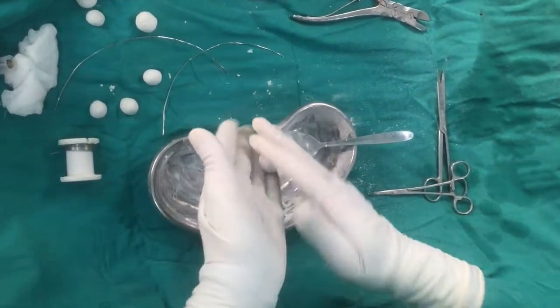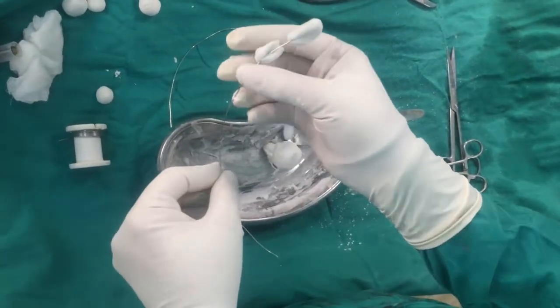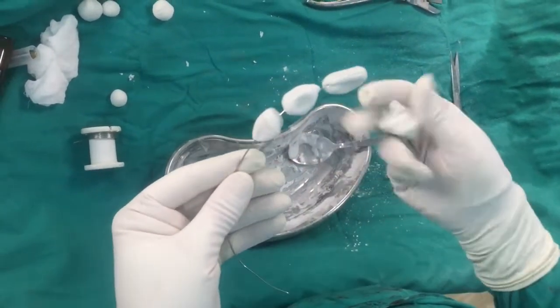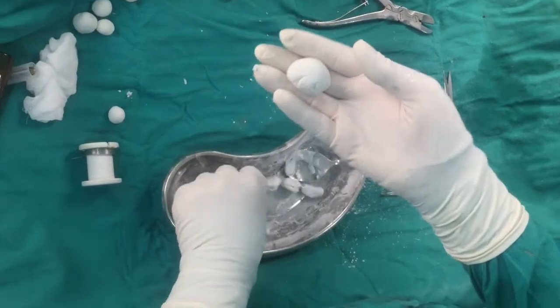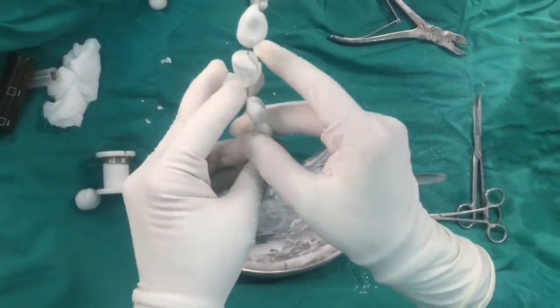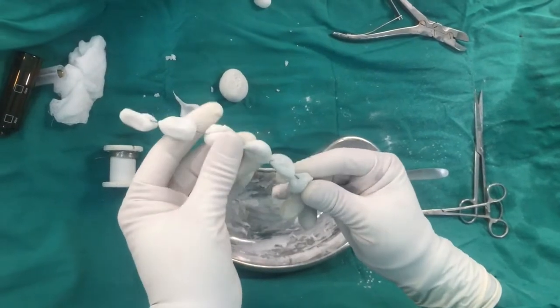The size of beads should be appropriate — small or medium size, not large. Now we are fixing our beads to the SS wire. We should remain cautious during fixing the beads to the SS wire that our beads are at an appropriate distance from each other, so the surface area remains large and the release of antibiotic will not be hampered. Now we have prepared one SS wire.